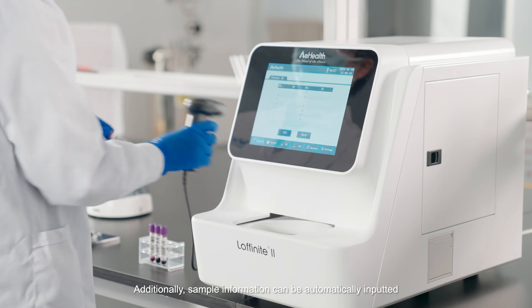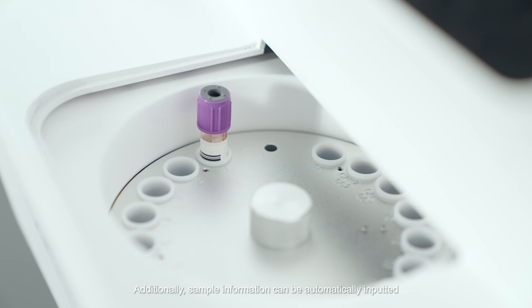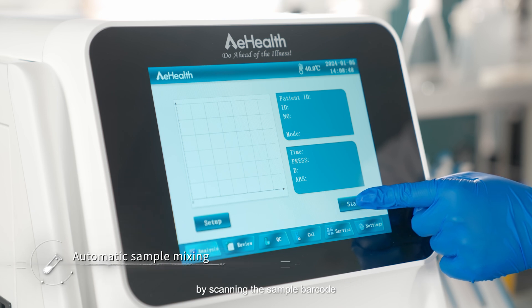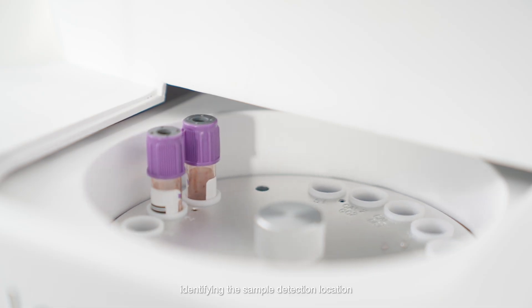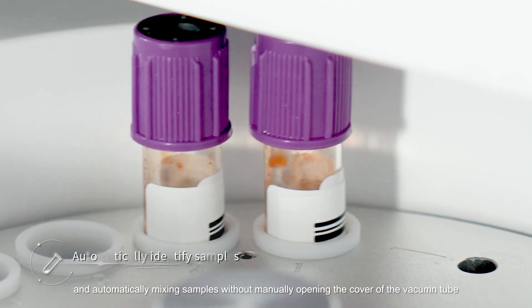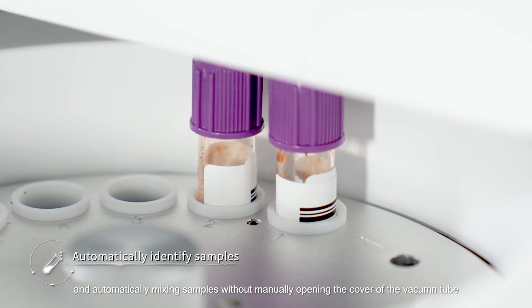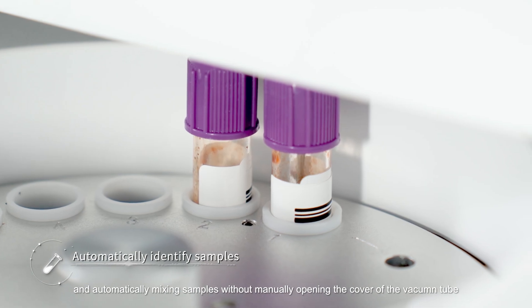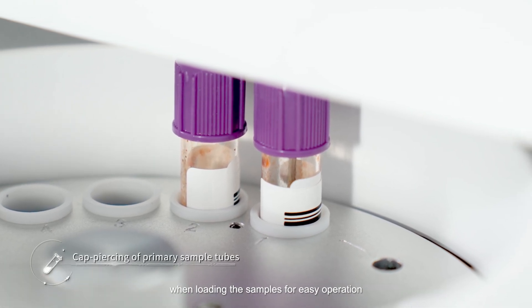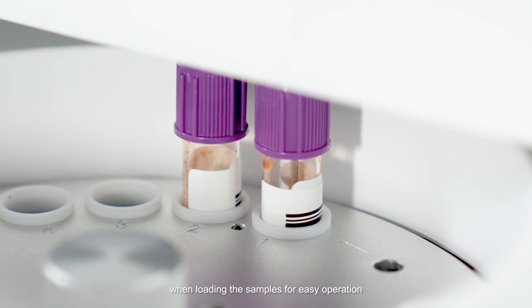Additionally, sample information can be automatically inputted by scanning the sample barcode, identifying the sample detection location, and automatically mixing samples without manually opening the cover of the vacuum tube when loading the samples, for easy operation.